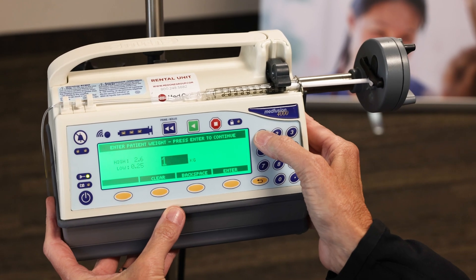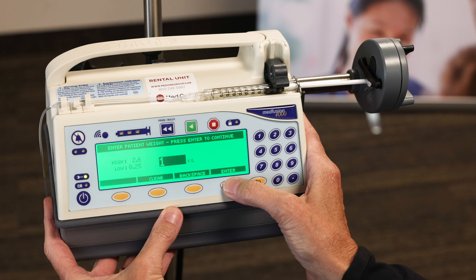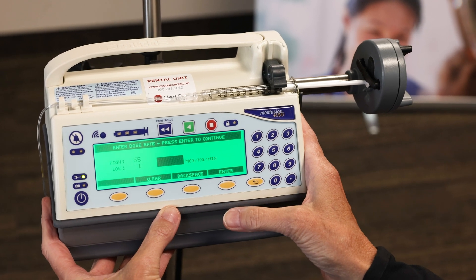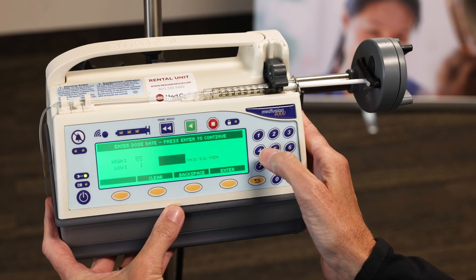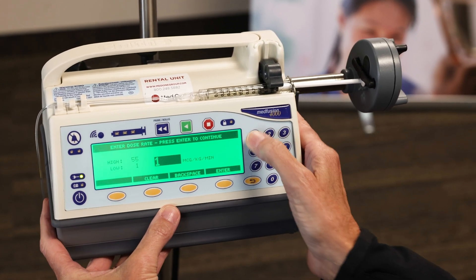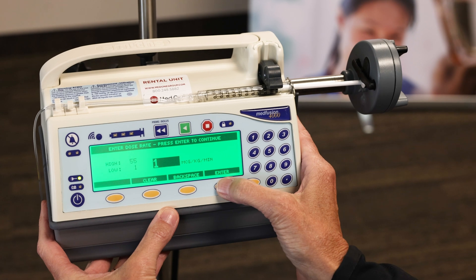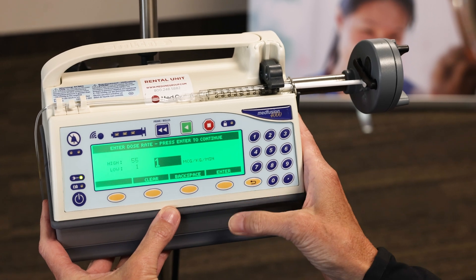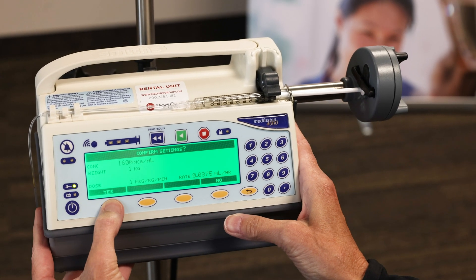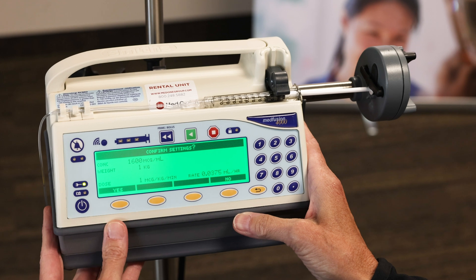The patient weighs one — press enter. And we'll start with a dose of one — press enter. Confirm the settings, yes.